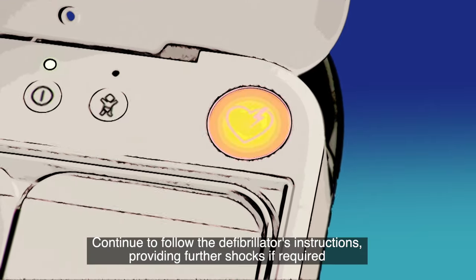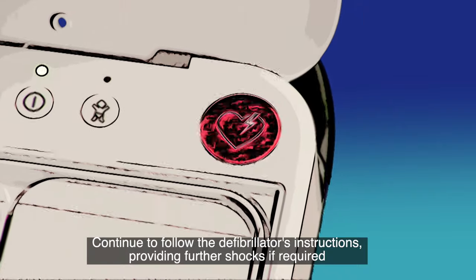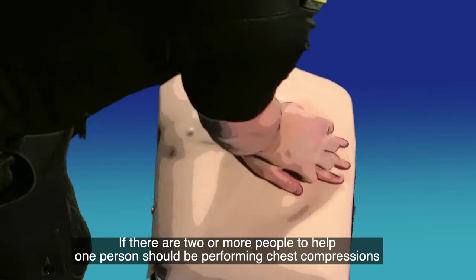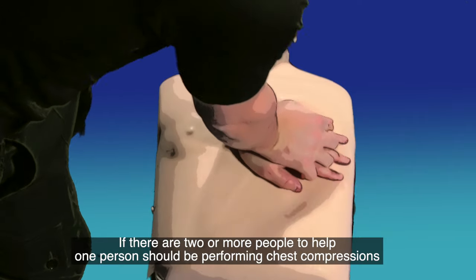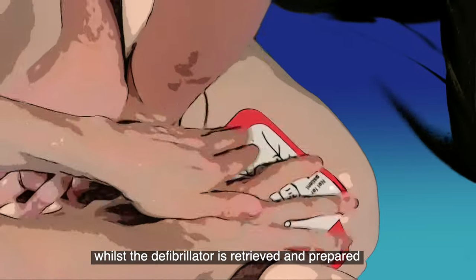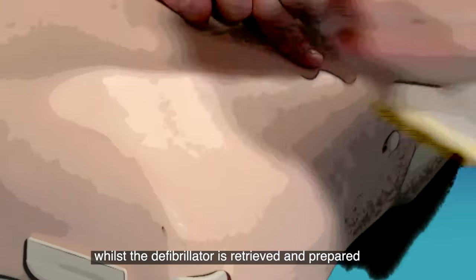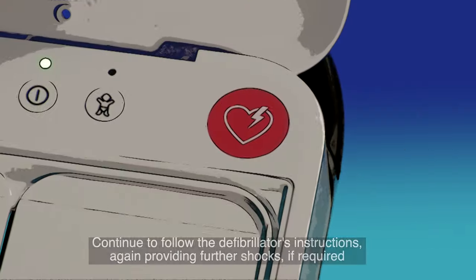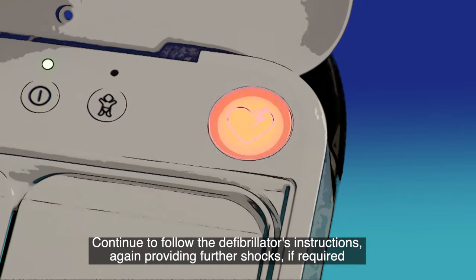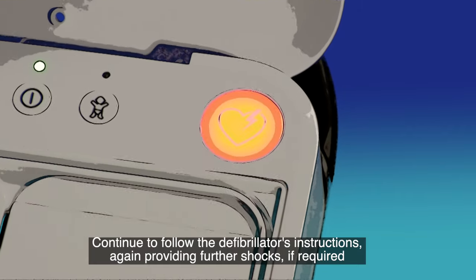Continue to follow the defibrillator's instructions, providing further shocks if required. If there are two or more people to help, one person should be doing chest compressions whilst the defibrillator is retrieved and prepared. Continue to follow the defibrillator's instructions, again providing further shocks if required.